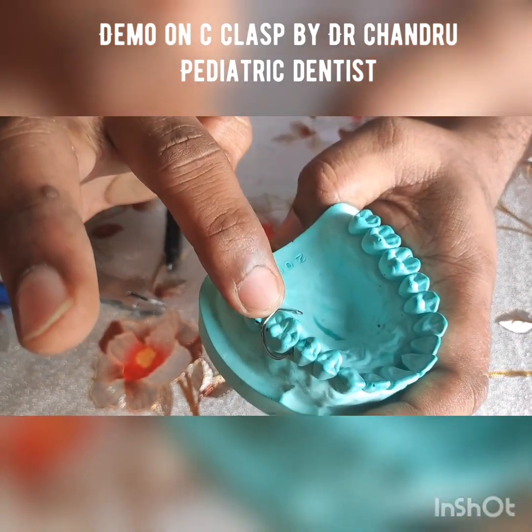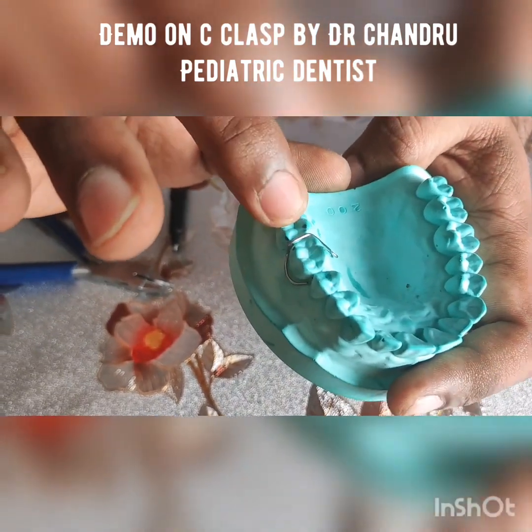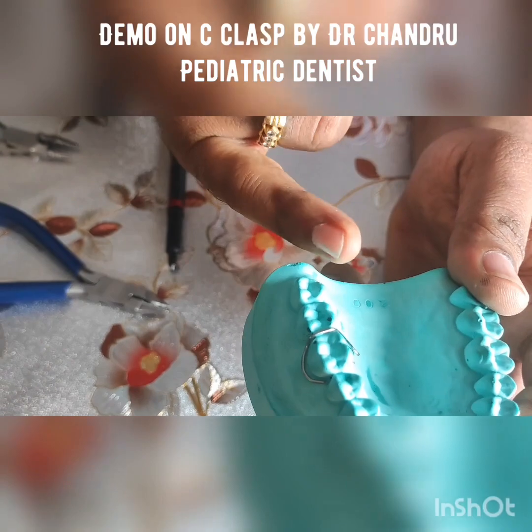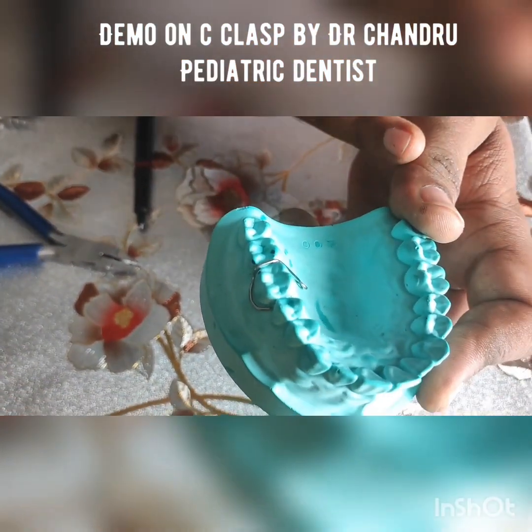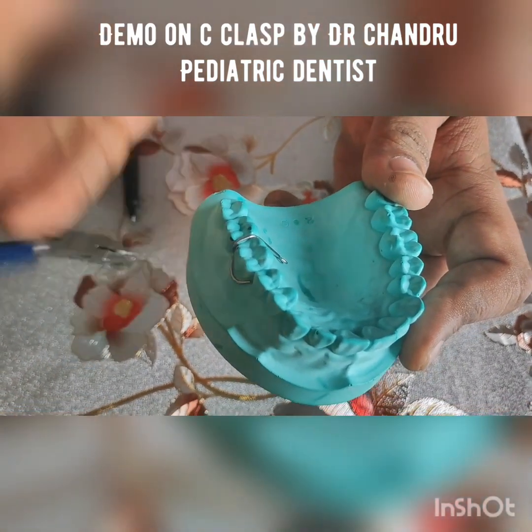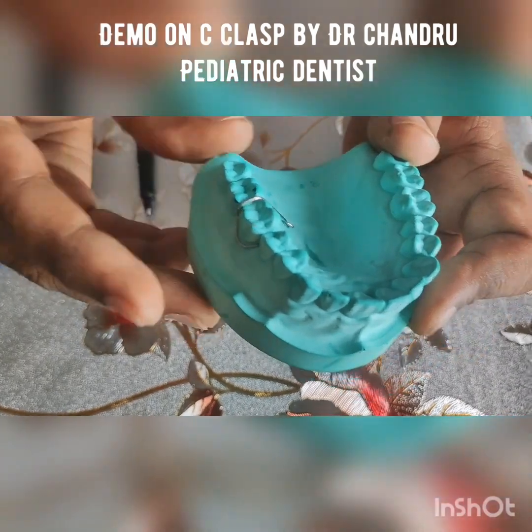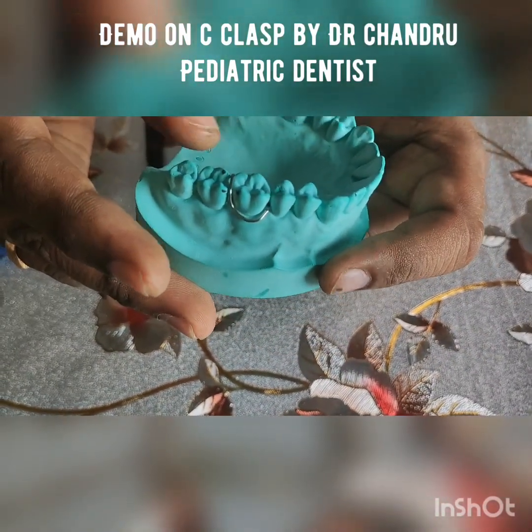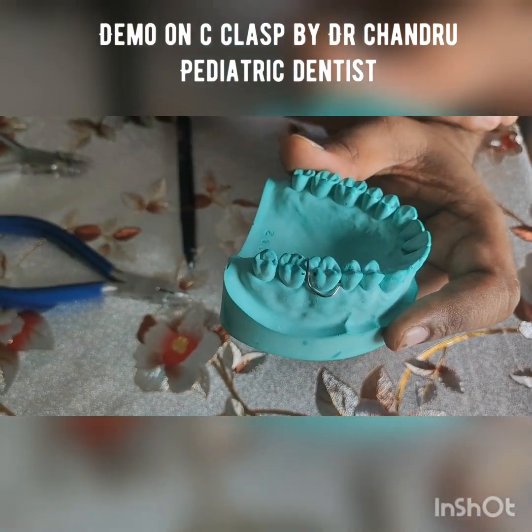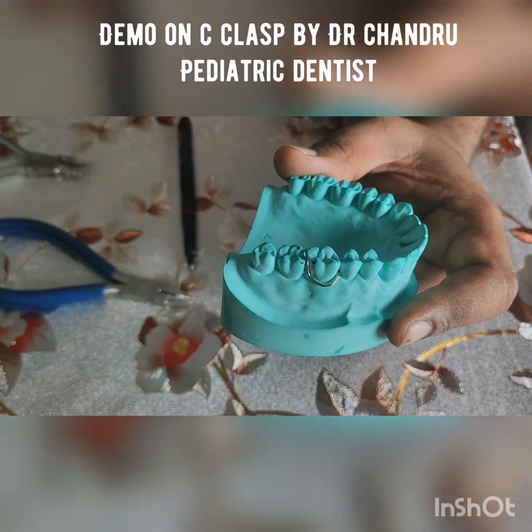This signifies that the adaptation on the occlusal surface has been done adequately, and you can see that a minute amount of space is present in the retentive arm. A small amount of space has been given mainly because the wire gets embedded in the acrylic portion, and it also helps in better retention if it is placed inside the acrylic portion of the components.